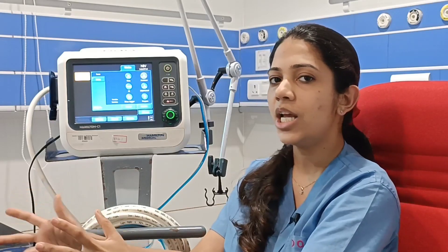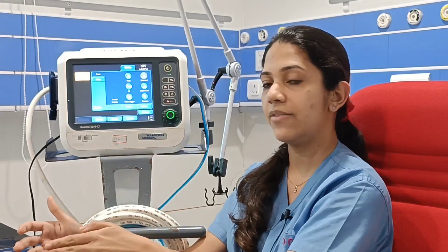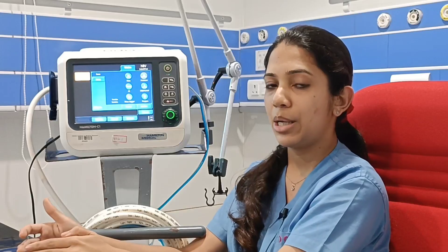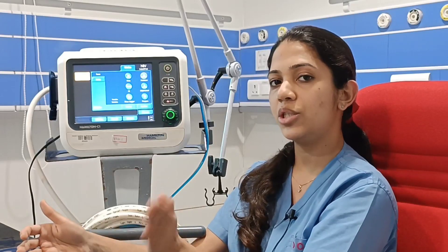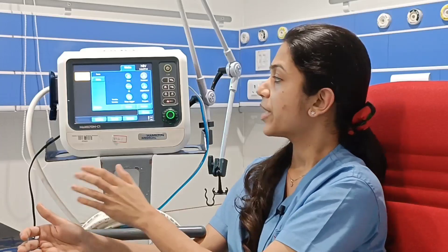If the patient is not getting ventilated well, we will increase the pressure control. If the patient is not getting oxygenated well, we will increase the PEEP.